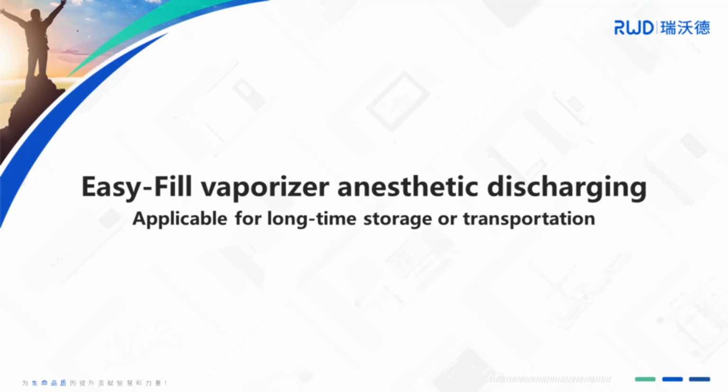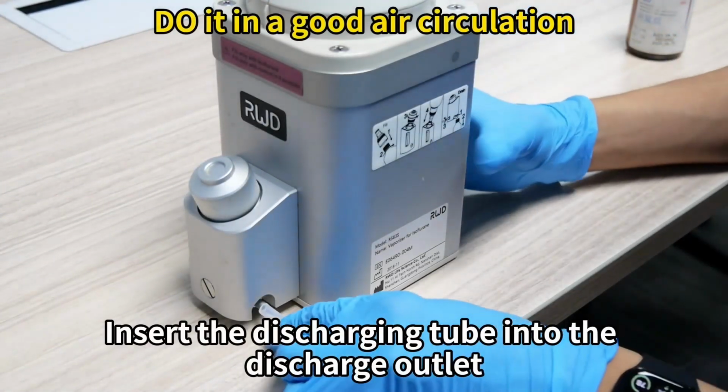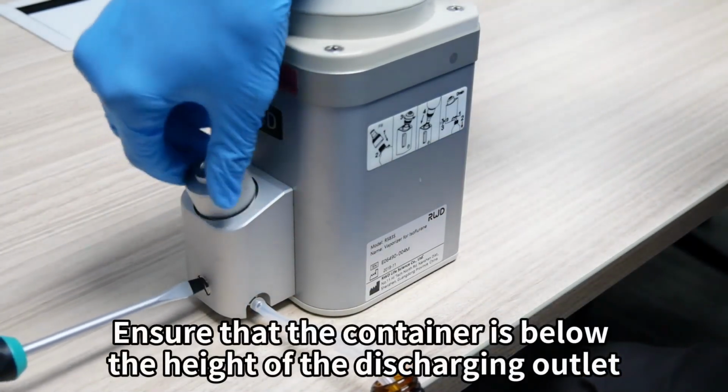Please do the anesthetic discharging in a good air circulation. Insert the discharging tube into the discharge outlet. Connect the other end to the waste liquid container. Ensure that the container is below the height of the discharging outlet.